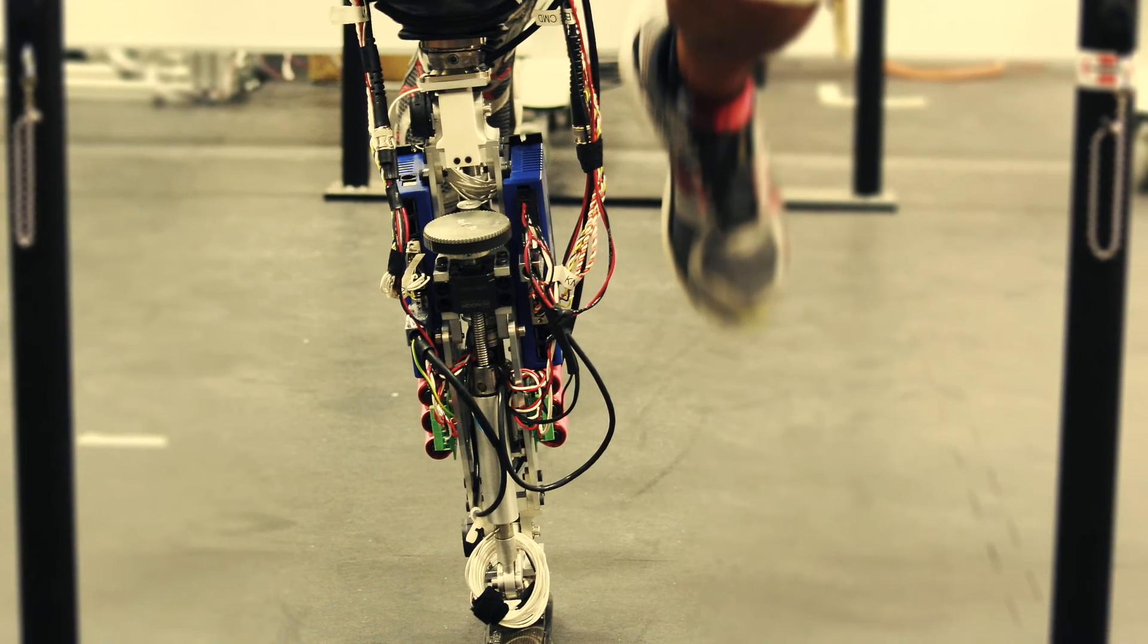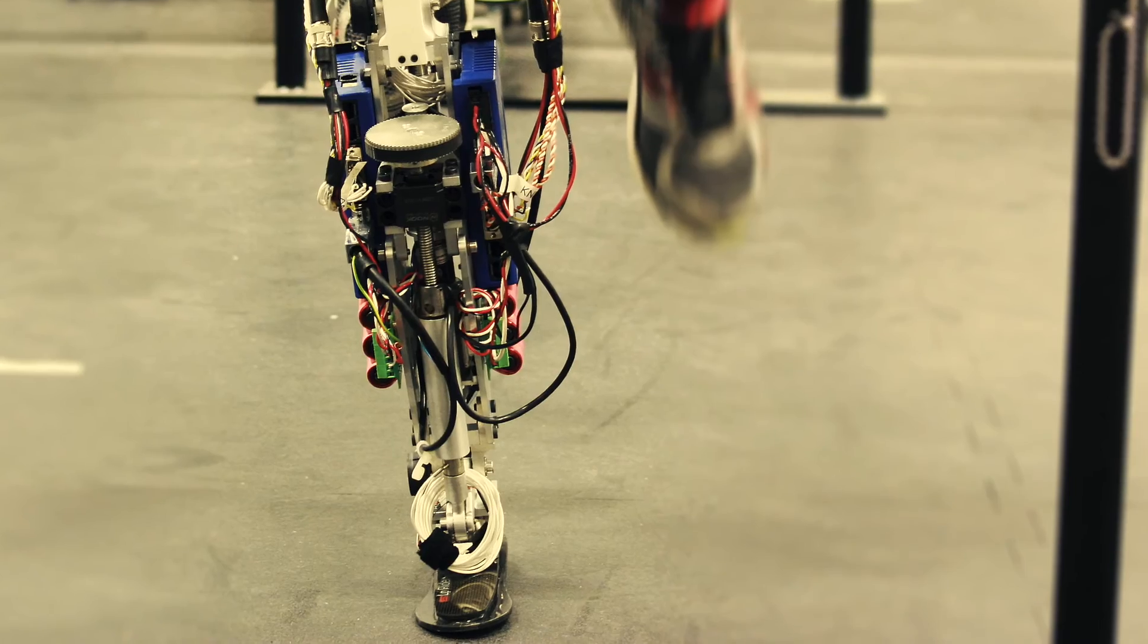like stairs, slopes, all in a way where the subject would not even have to think about it as if they didn't even know the prosthetic leg was there.